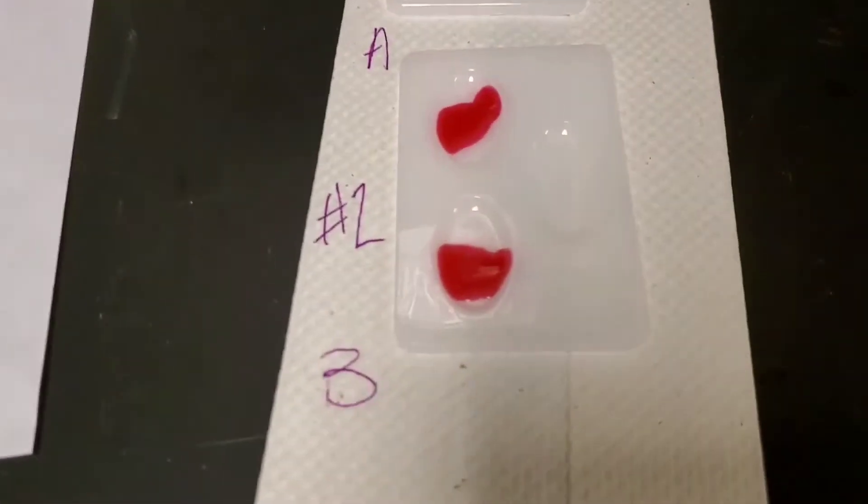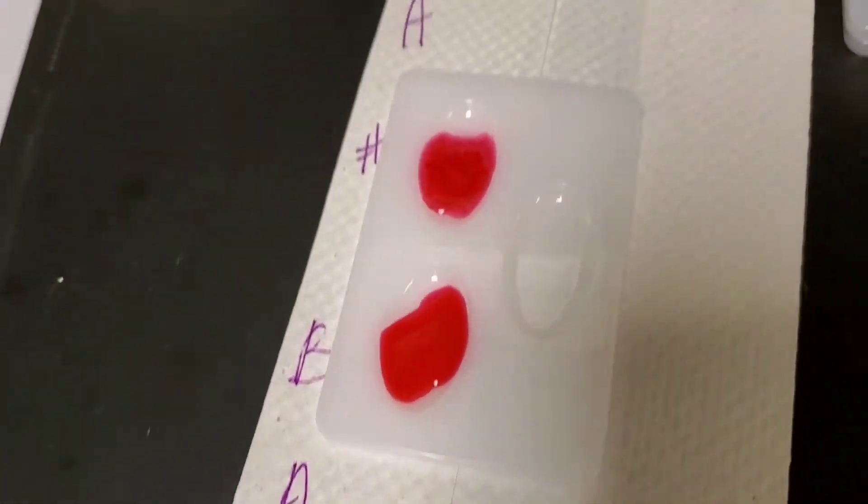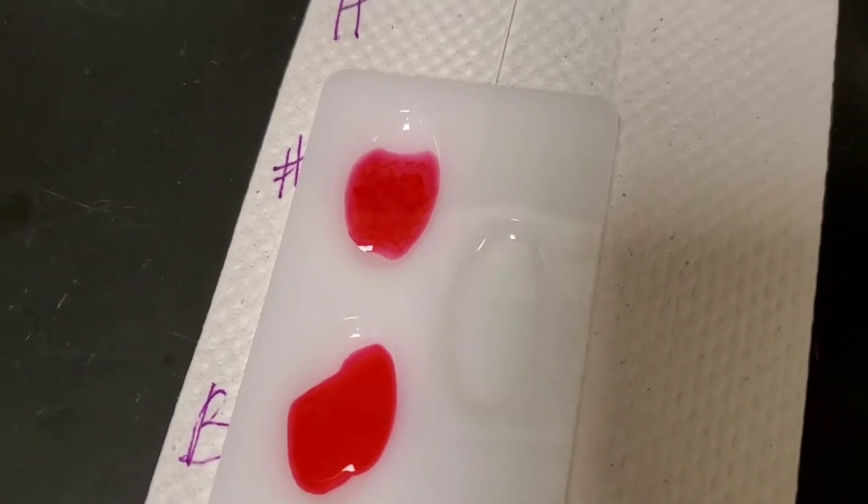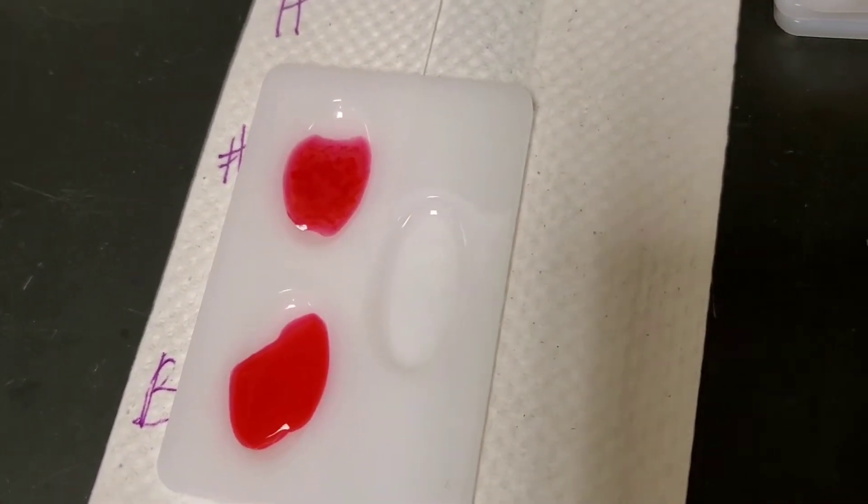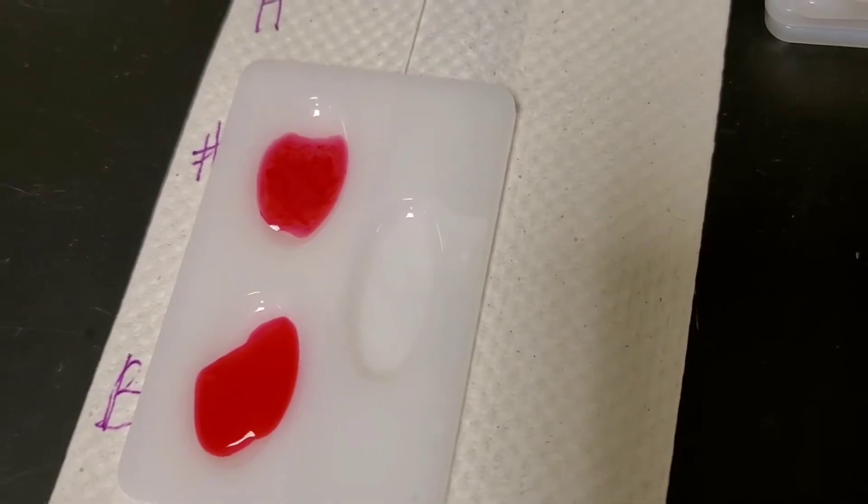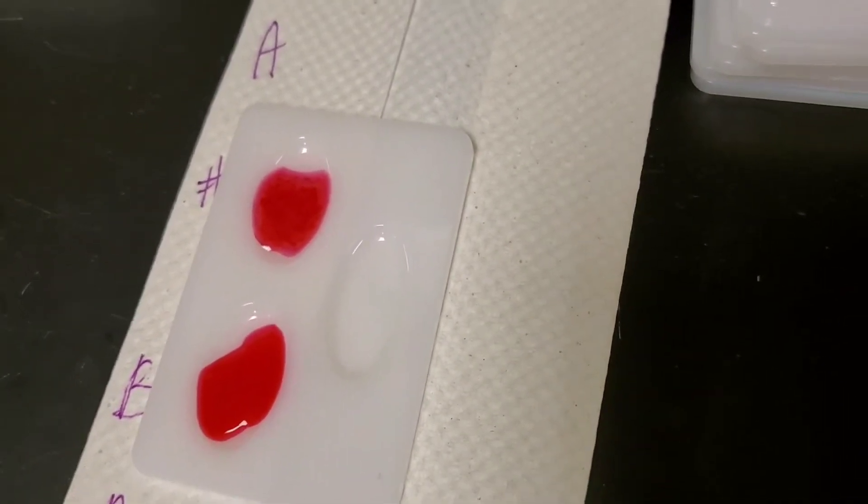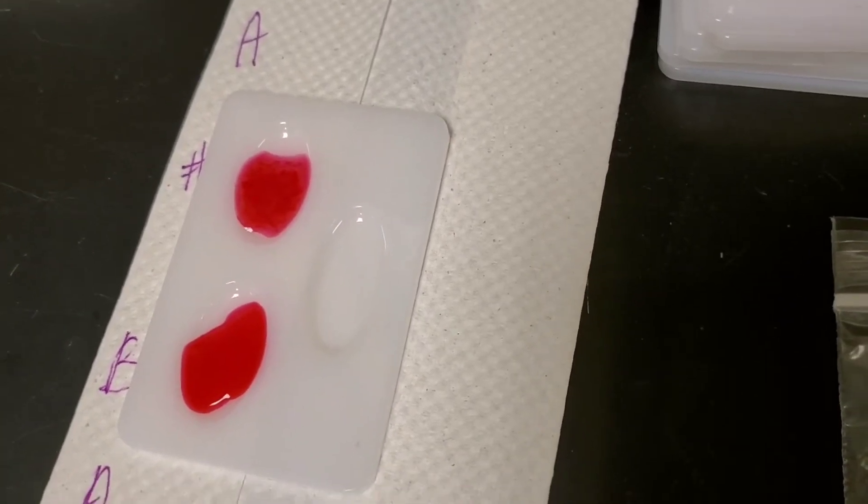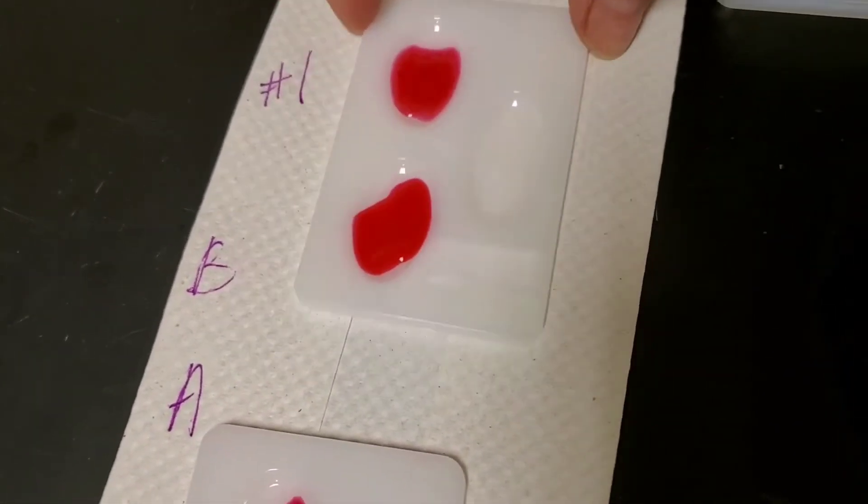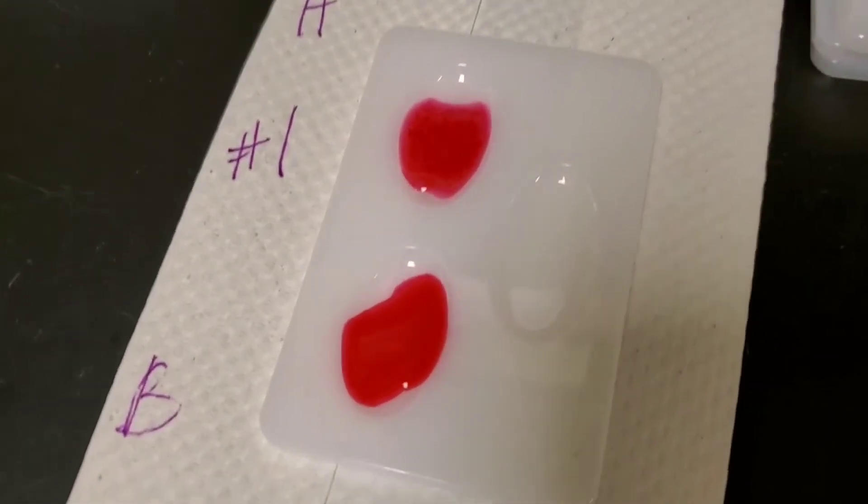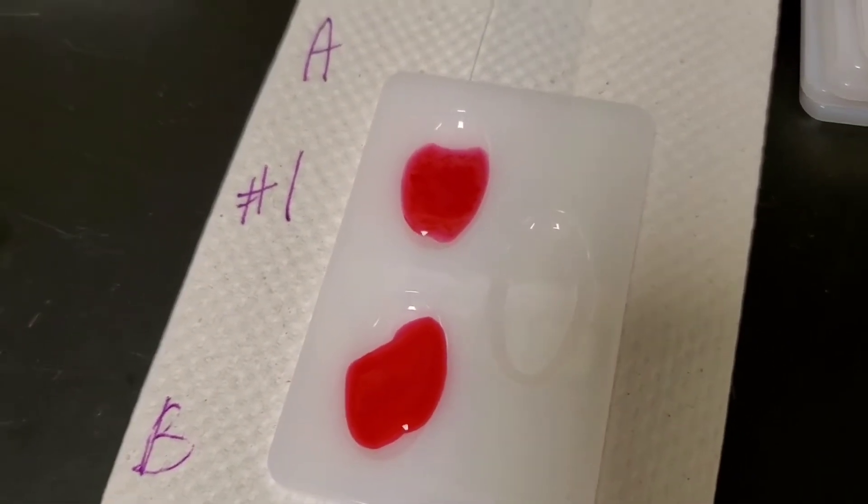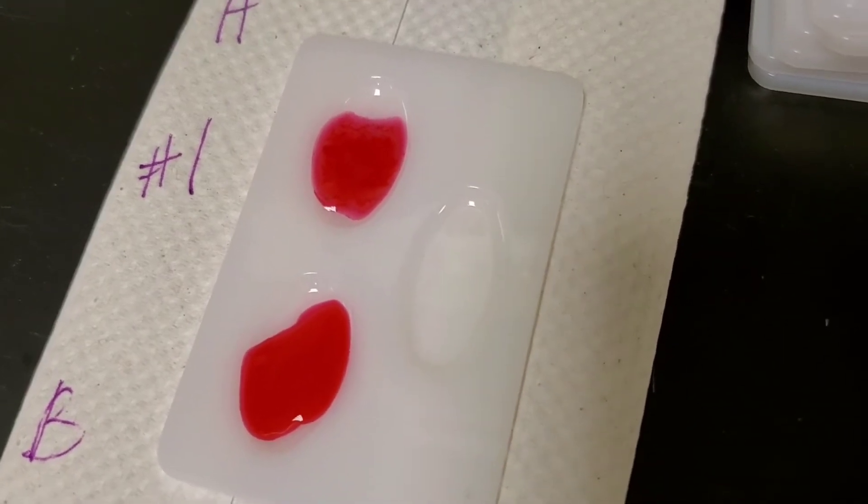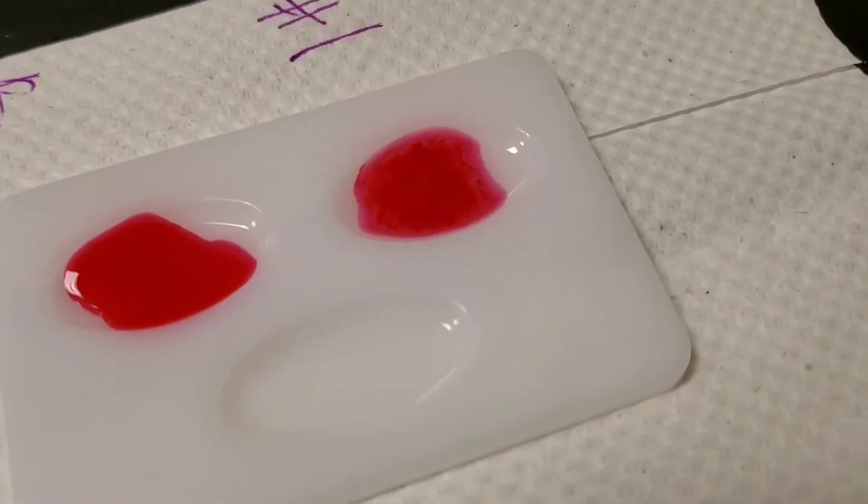Let's first look at patient A, and here are the results. Hopefully you took a moment to reread the lab. Remember that we put anti-A in well plate A for each patient and anti-B in well plate B for each patient. So those are the results, you interpret them. Look really carefully, think about their consistency.